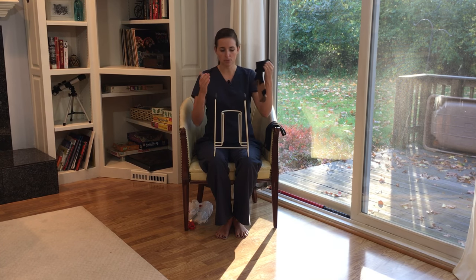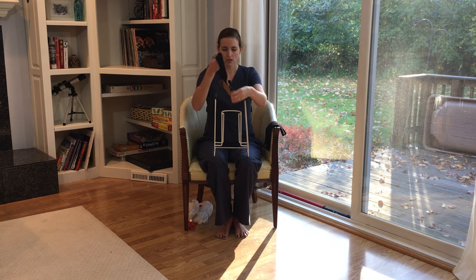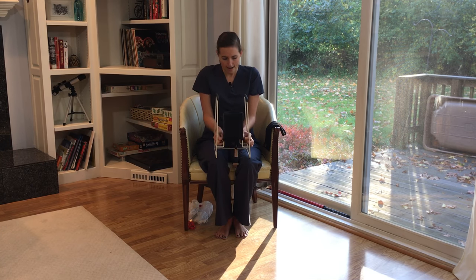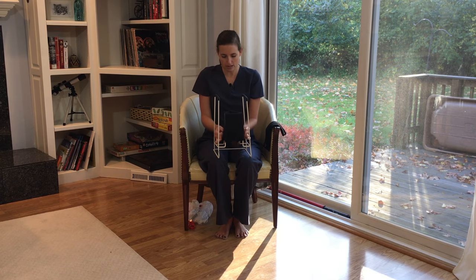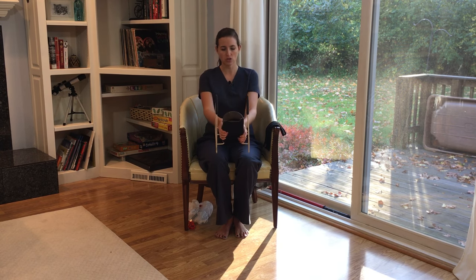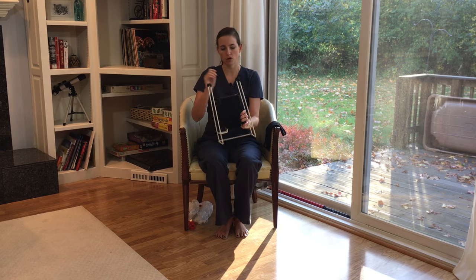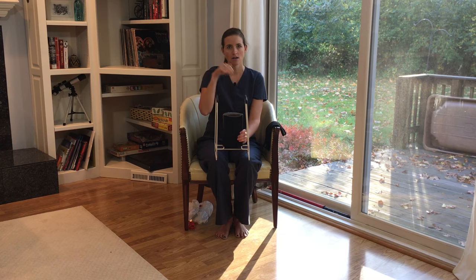We're going to set it on my lap — if you have a tabletop or surface you could set it on that as well, but it's good to have it up towards you. You're going to take your sock, and the foot is going to go into this. You're going to try to orient it so that the toes are pointing out and pull it all the way down. This one has a colored heel so I can tell when the heel is out. Pull it all the way down so the heel is completely covering the top, meaning the toe is right here. You want to make sure that your toes are at the end of the stocking before you go to pull it on, because if you don't, the foot of the sock is going to be hanging off your foot and it's a real challenge to try to adjust it into place.